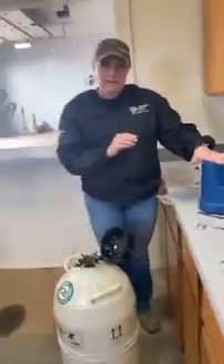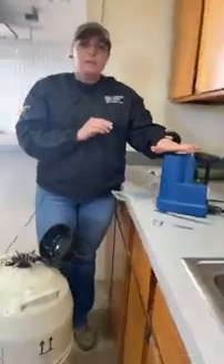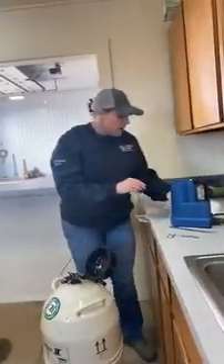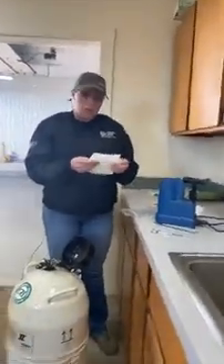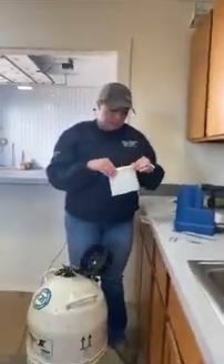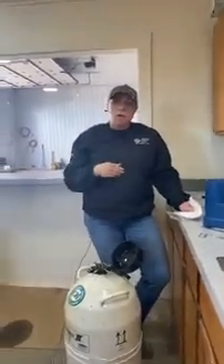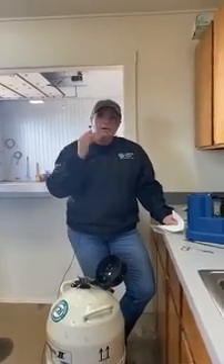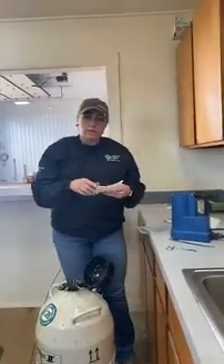We do that for 45 seconds in the warm water bath, 95 to 98 degrees Fahrenheit, 45 seconds — just like with your half CC straws. Then the tip I shared last week was about loading the semen into the gun. We talked about needing either a universal gun or a gun that works for quarter CC straws. I have a combi gun here and I'll show you really quick the tip I used to load that gun last week.